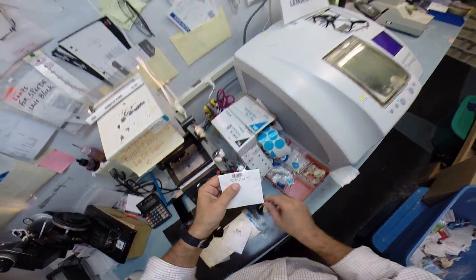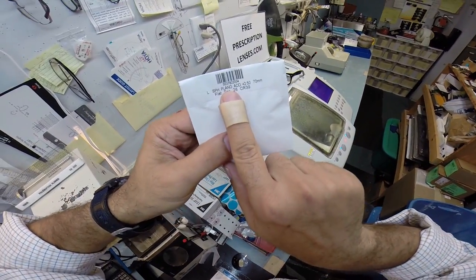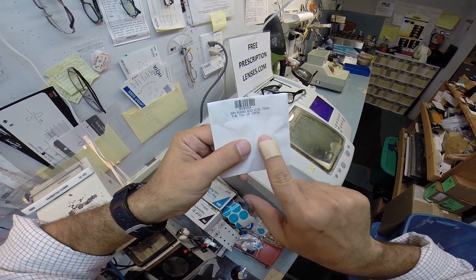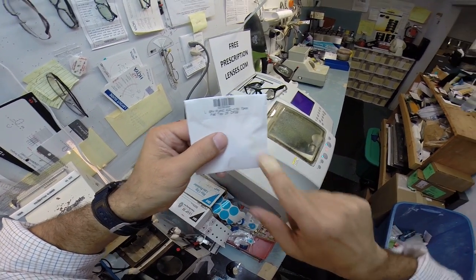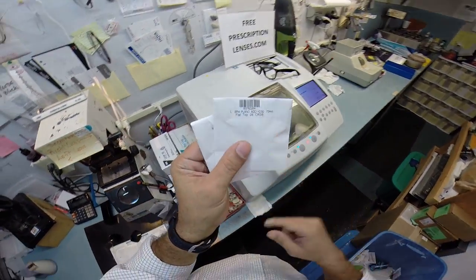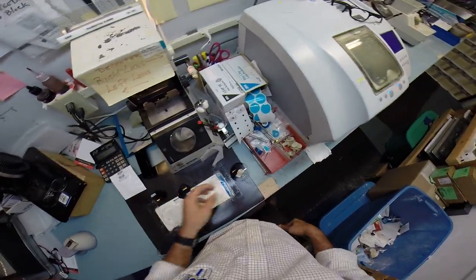Your lenses are plano at the top, which means no prescription with a plus 250 bifocal at the bottom. And this is a flat top 28 lens.